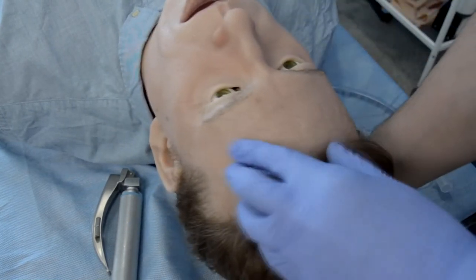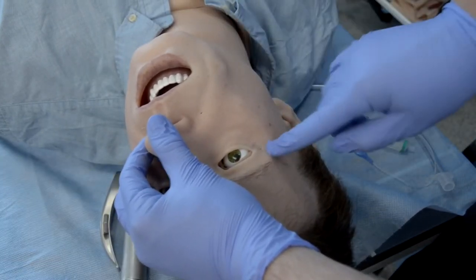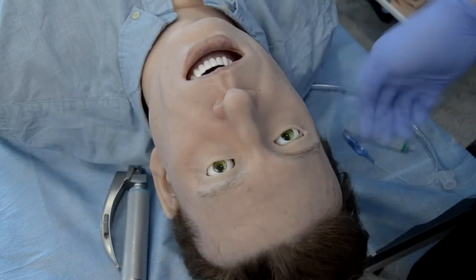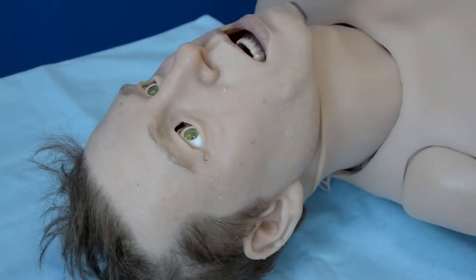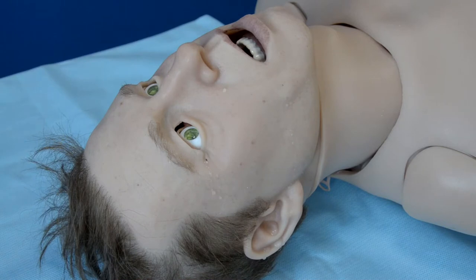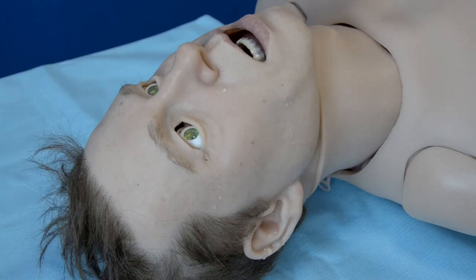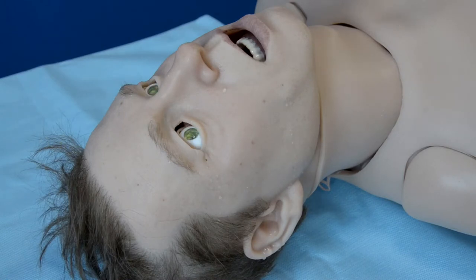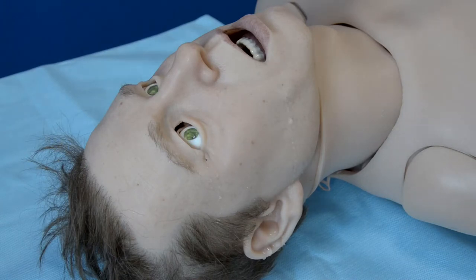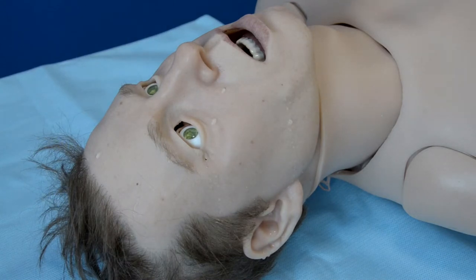If we look closely, we can see the little holes where the water for secretion would be coming from. They are very small and when the water comes through it doesn't really look artificial. Leo has two tanks inside — one for secretion and one for fake blood. On Leo we can see tears, secretion from the ears, mouth secretion, secretion from the nose, and sweating on the forehead.